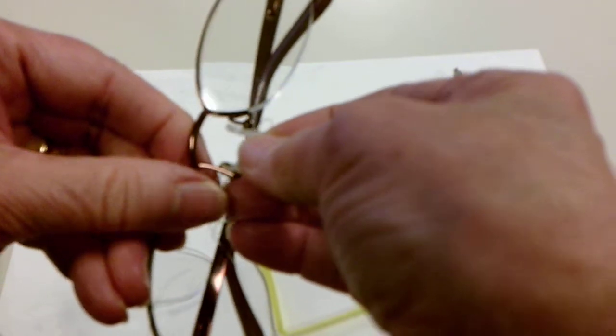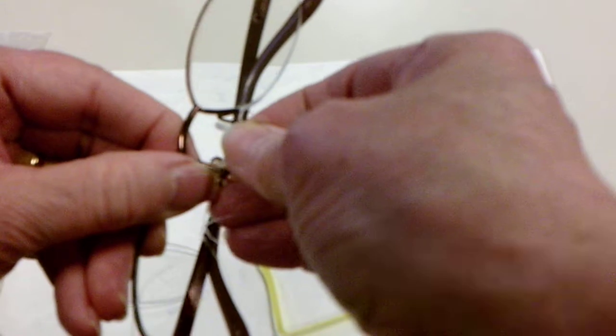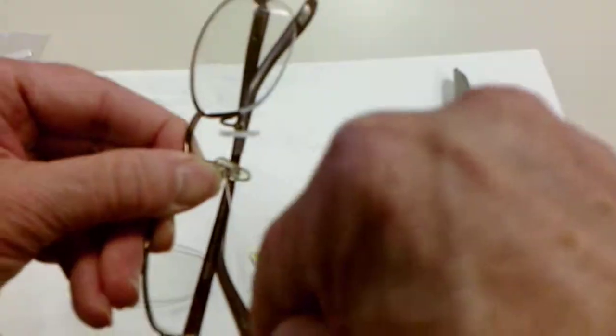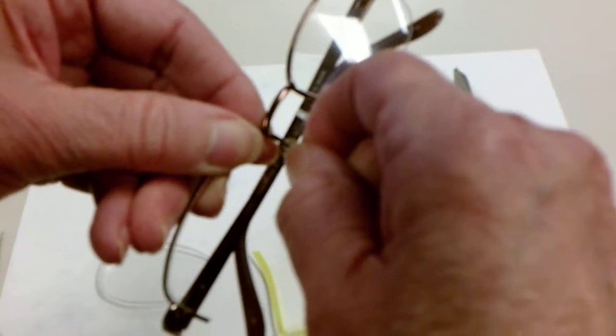We see we have a little piece of eye wire here. We're going to pull it taut and then tuck that little piece in. Just like that.